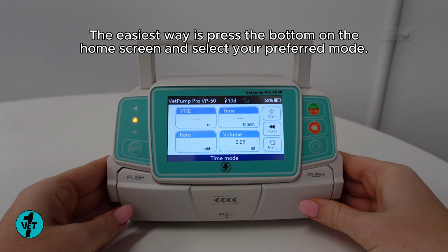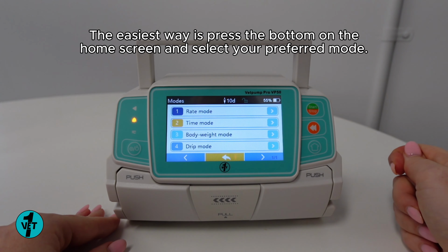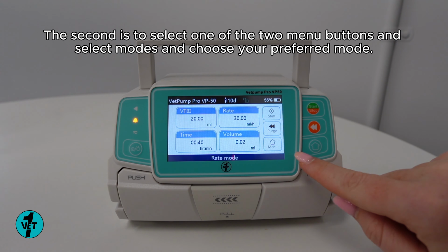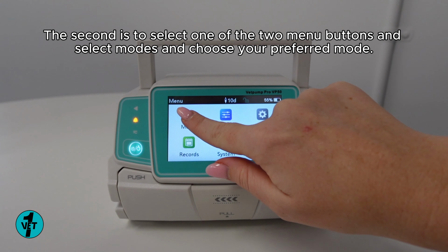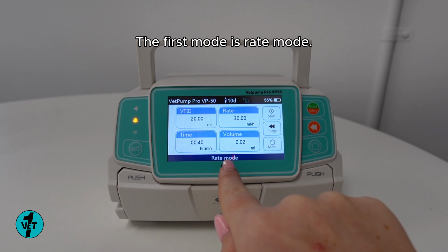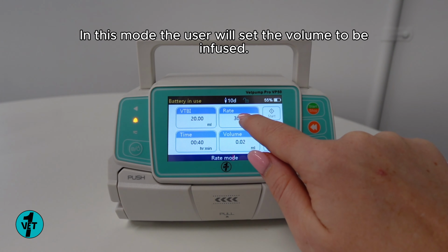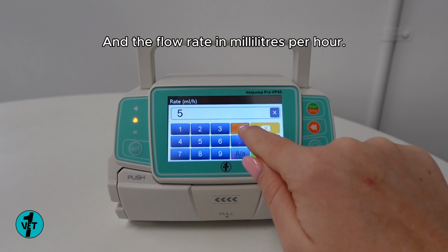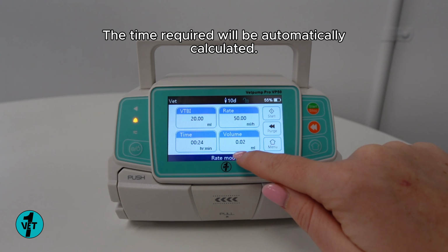The easiest way is to press the button on the home screen and select your preferred mode. The second is to select one of the 2 menu buttons, select modes, and choose your preferred mode from the list. The first mode is rate mode. In this mode, the user will set the volume to be infused and the flow rate in milliliters per hour. The time required will be automatically calculated.